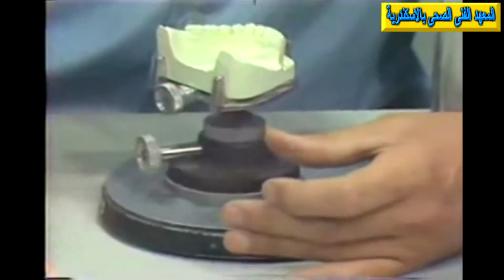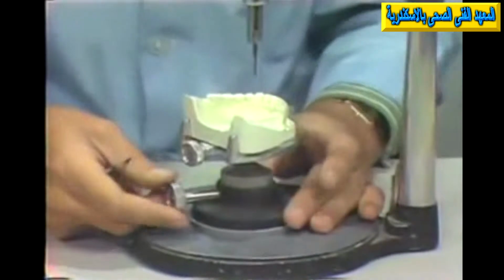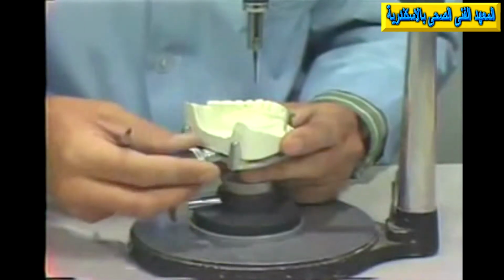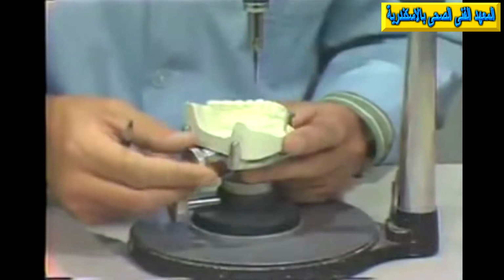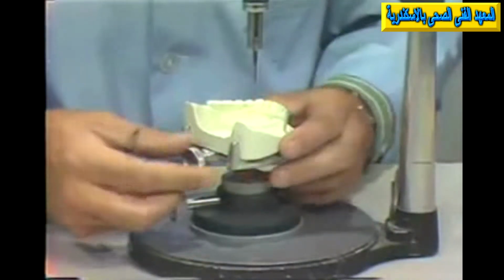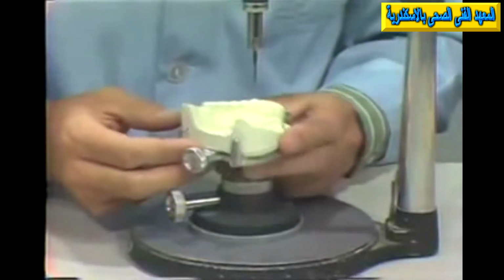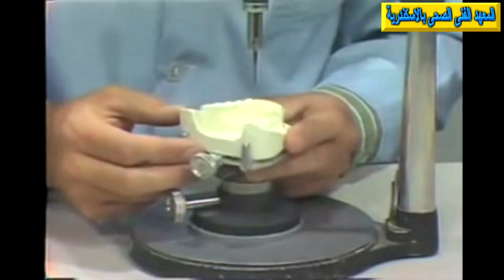Now, if we have a cast already mounted on the base of the surveyor, the bottom little knob here loosens the entire base and table, and the upper knob here merely tightens the cast so that it's fixed tightly to the table. The top one should be tightened well so that we're not going to have our cast flopping around loose. And then as you loosen the bottom one here, this cast can be tipped at any angle that we desire in order to check the possibilities of differences in parallelism.